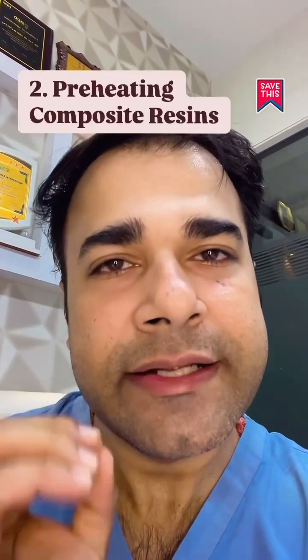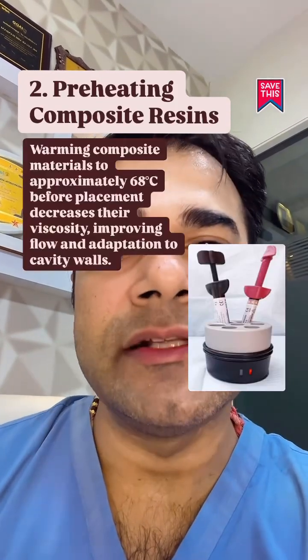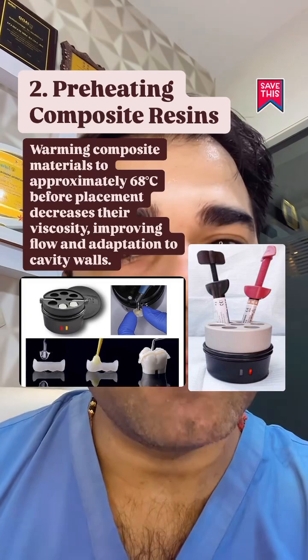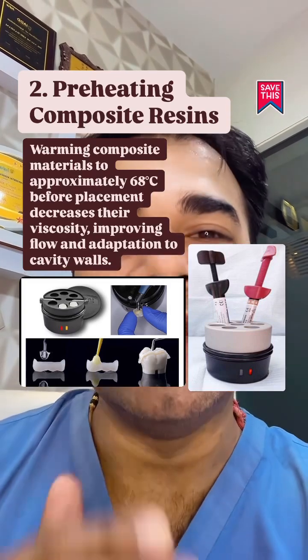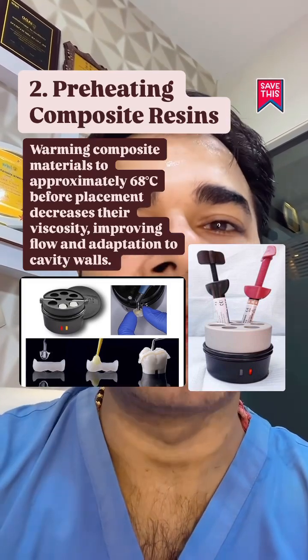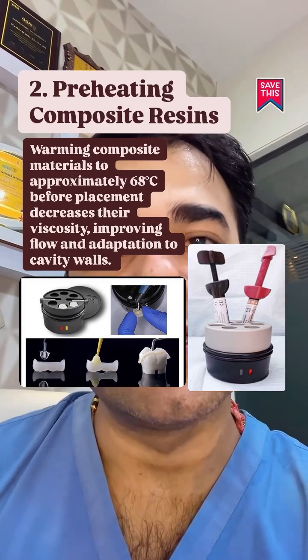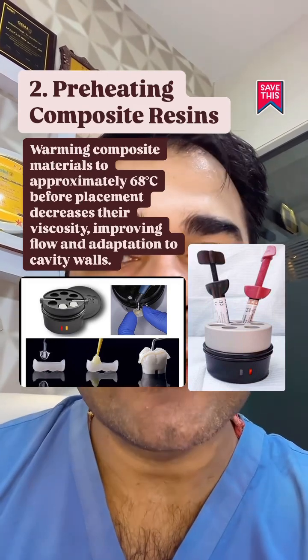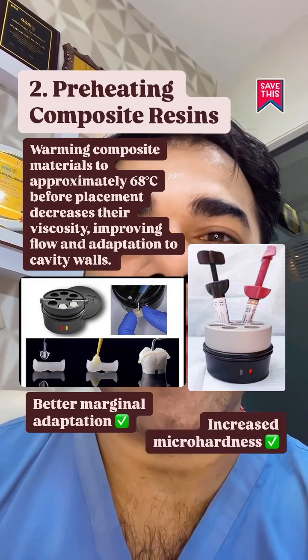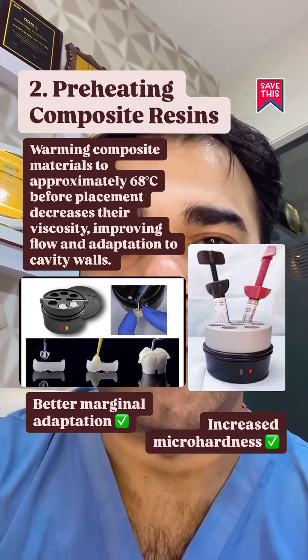Preheating the composite resins: warming composite materials to approximately 68 degrees before placement decreases viscosity, improves flow and adaptation to the cavity walls. Preheated composites exhibit better marginal adaptation and increased micro hardness upon curing.